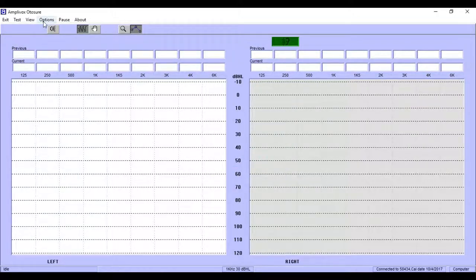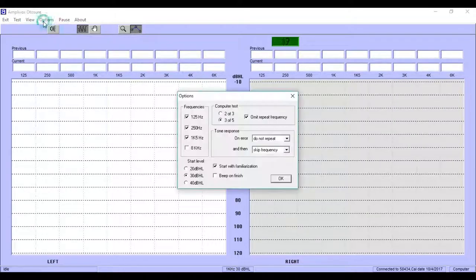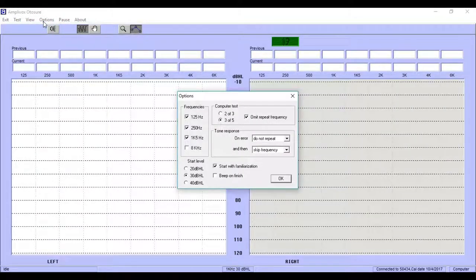Select options on top of the screen. If you'd like to learn more about the different settings available, watch the corresponding YouTube video explaining the different test settings.